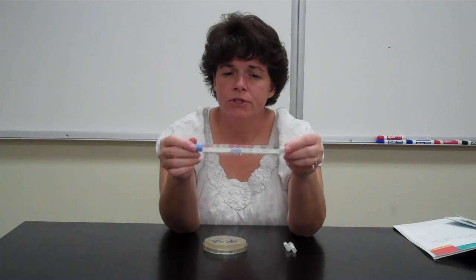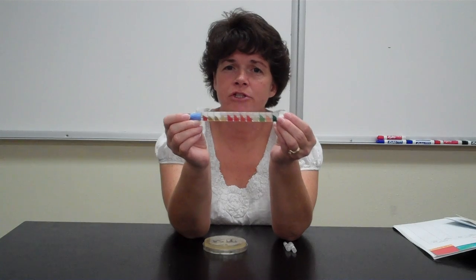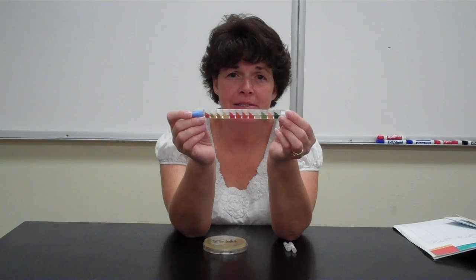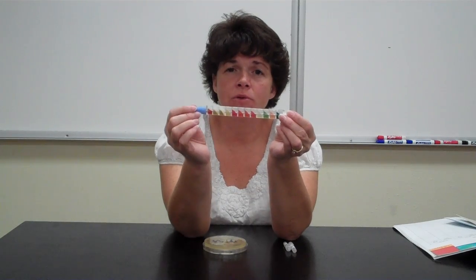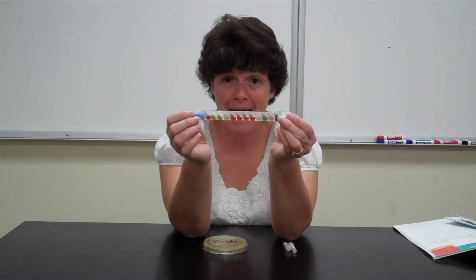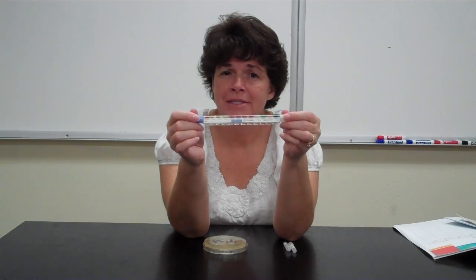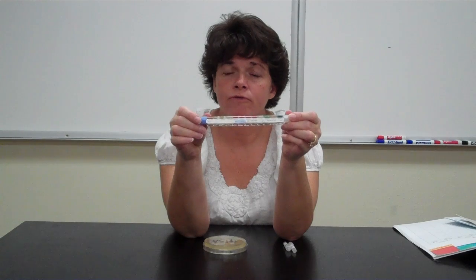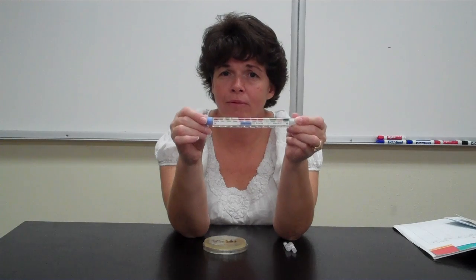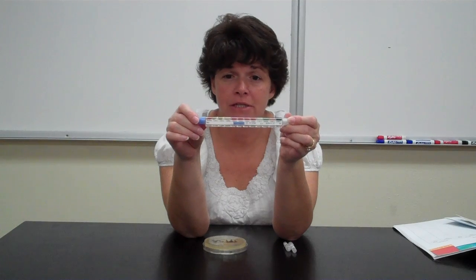The other thing that I want you to notice is these first three compartments have this white stuff in there. That's actually wax. And remember that some bacteria, when they ferment sugars, produce gas like carbon dioxide. What will happen is the wax will actually separate from the media if the bacteria produces gas, okay? At the very least, a microbe that is an enteric is going to ferment glucose and probably produce gas. So your first compartment should always change color. If it doesn't change color, then it's not really an enteric bacteria.